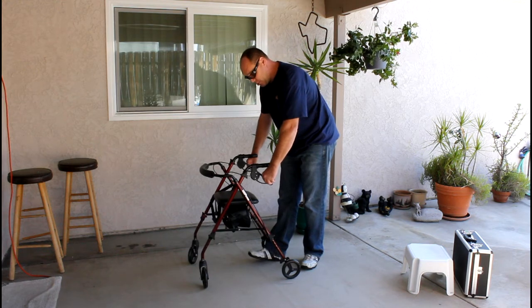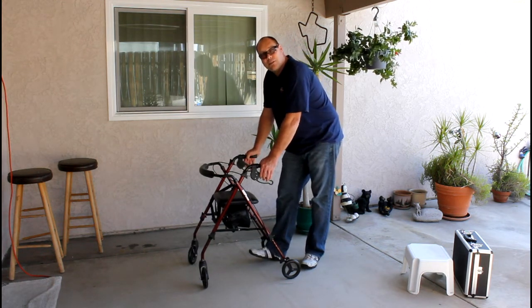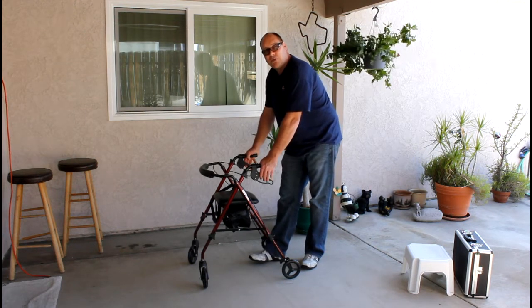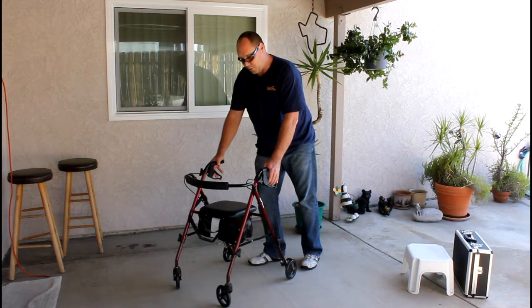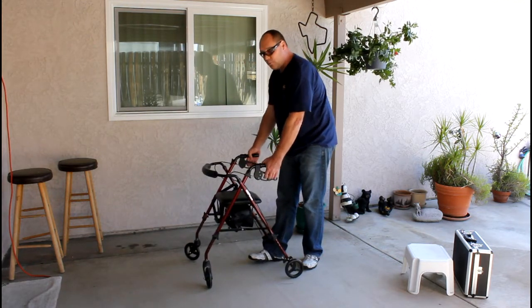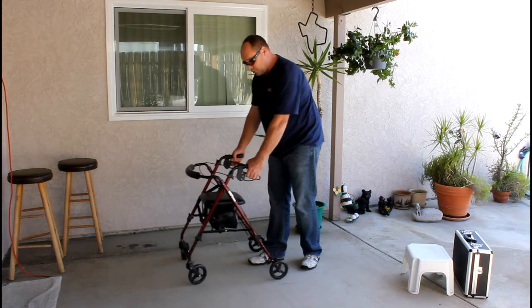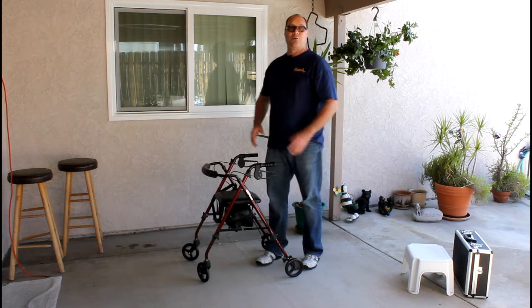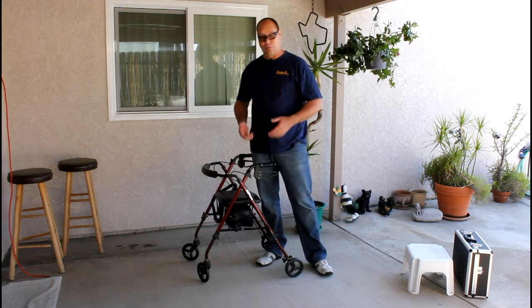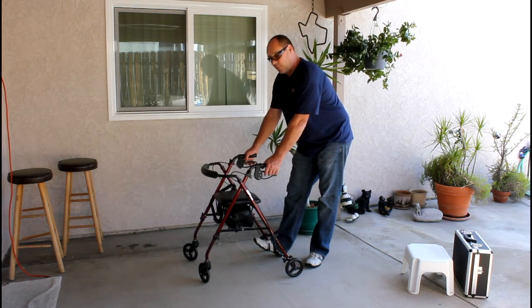The second is emergency brakes. When the handles are pushed downward, the walker should lock in place. What's happening is that one wheel will be out of adjustment and it'll spin to one direction, right or left — or they won't even be able to stop the walker at all and it'll just slide forward. Showing them is very important so they understand: one, you're doing them a huge favor; two, you care; and three, you're going to make adjustments that will make it a lot safer.